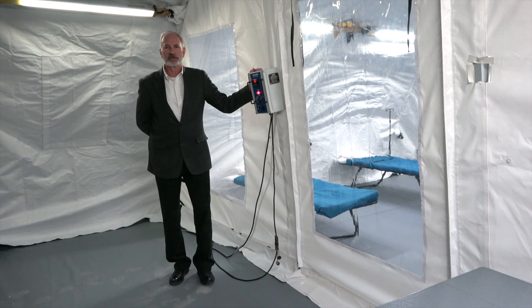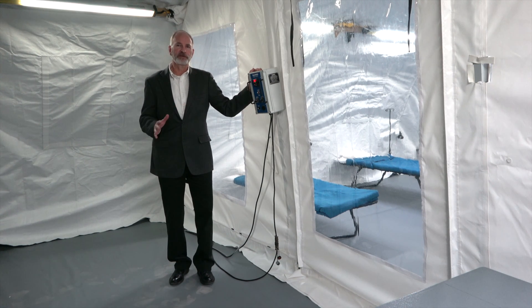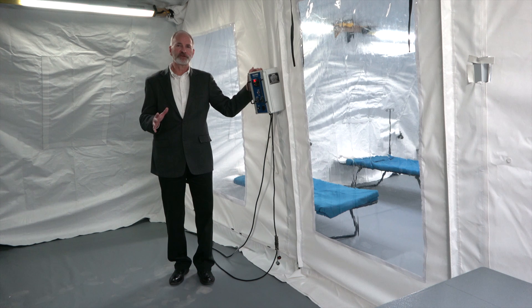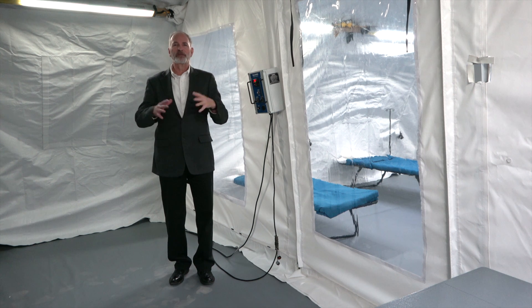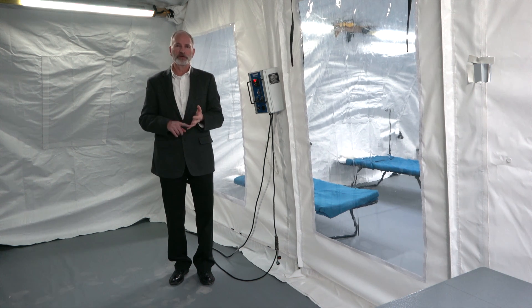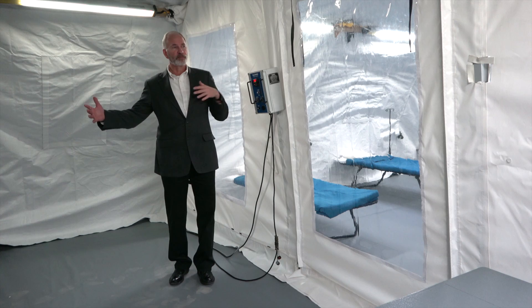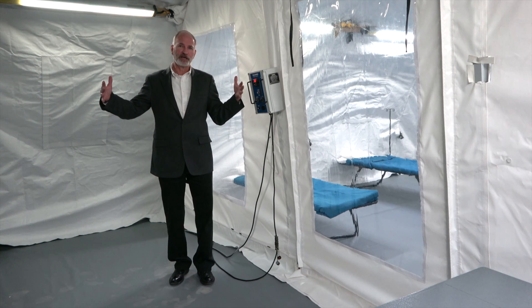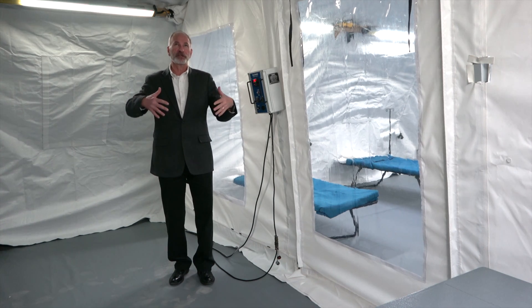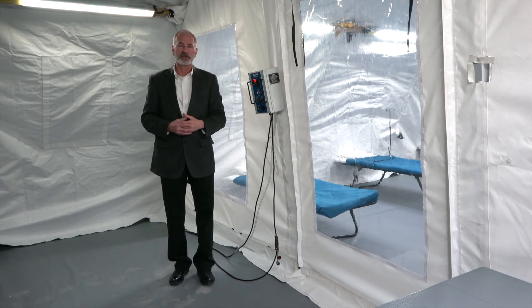We just entered the shelter. The shelter is composed of five major fabric components: the floor, the cover, there's an end panel on each end, and then there's an insulation liner inside the shelter.